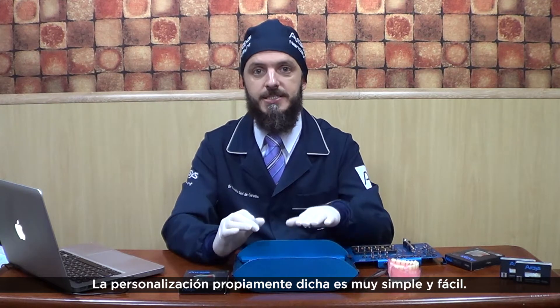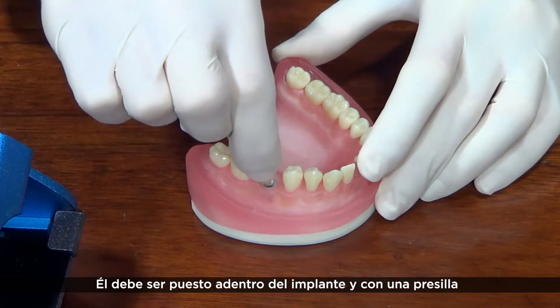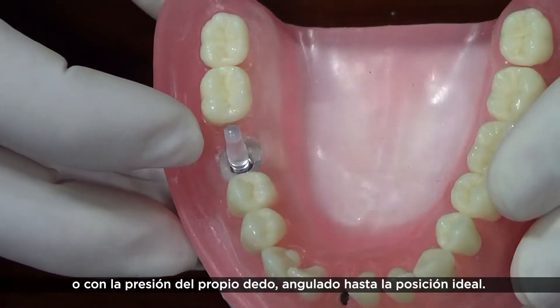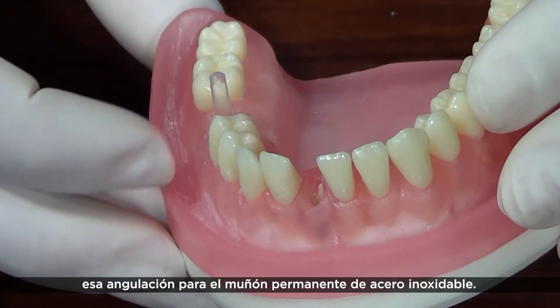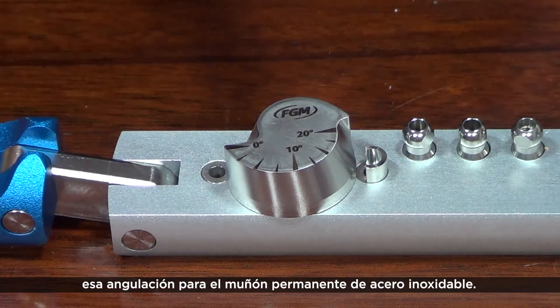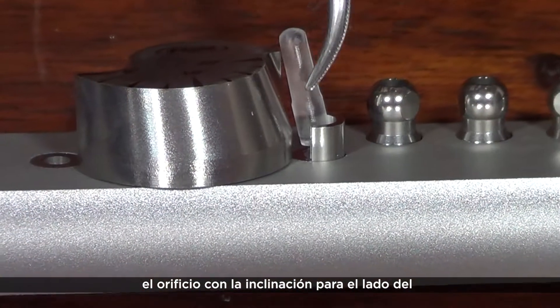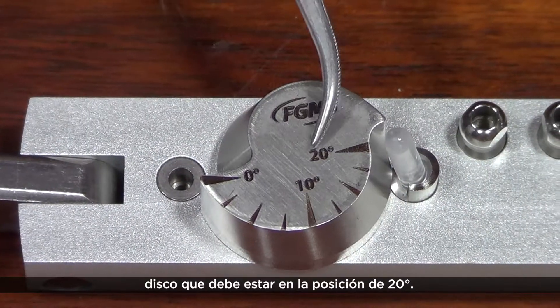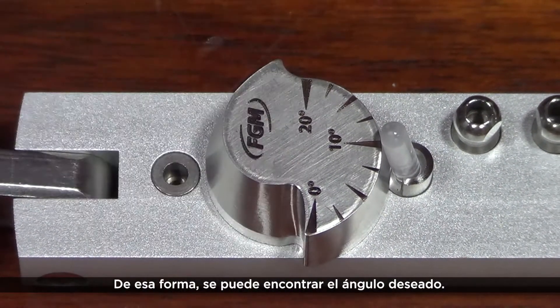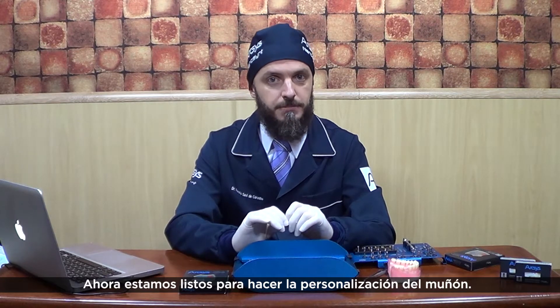The customization itself is very simple and easy. For this, we will use the plastic angle referrer. It should be placed into the implant and, through a clamp or even finger pressure, led to the better prosthetic position. Now we are ready to transfer the ideal angulation to the stainless steel permanent abutment. Use the abutment folding device. For angulation, insert the angle referrer inside this hole with the inclined rod turned to the central disk, which should be at the 20-degree position. Spin the disk until it touches the angle referrer — this way it's possible to find the intended angle.